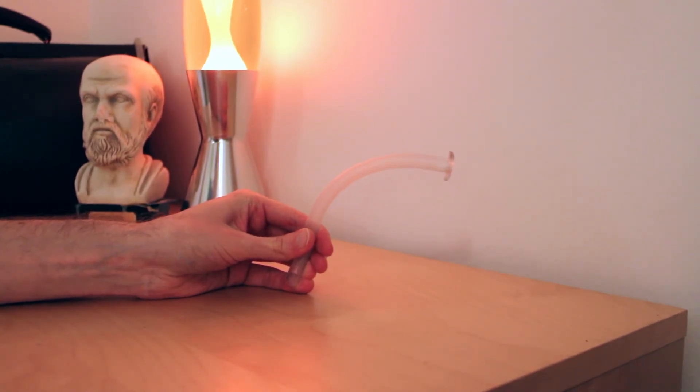In summary, this is a nasopharyngeal airway adjunct that is used to maximise manual ventilation of patients with a reduced level of consciousness and respiratory depression.